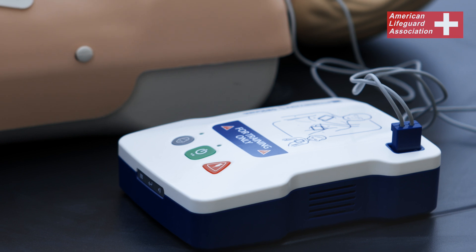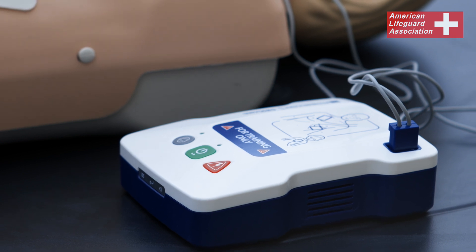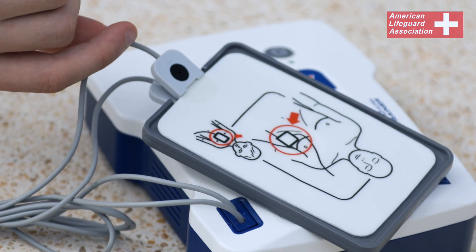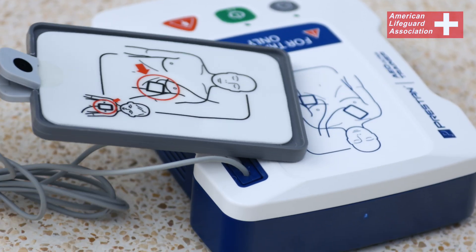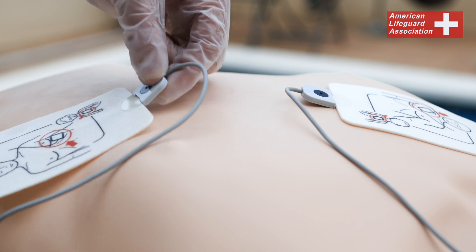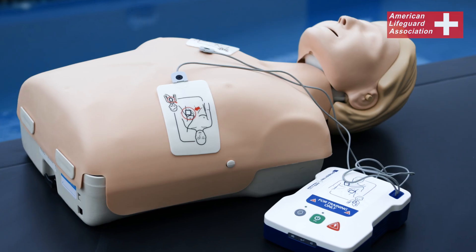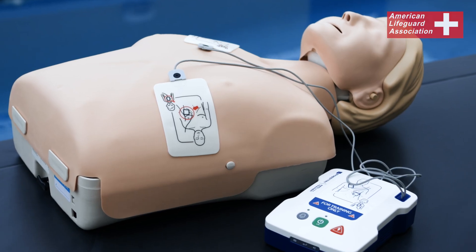An automated external defibrillator, AED, is a crucial component of the cardiac chain of survival. Familiarize yourself with the standard precautions for its proper use.